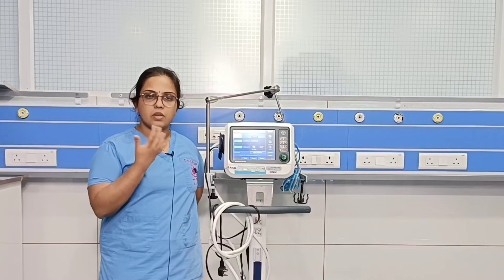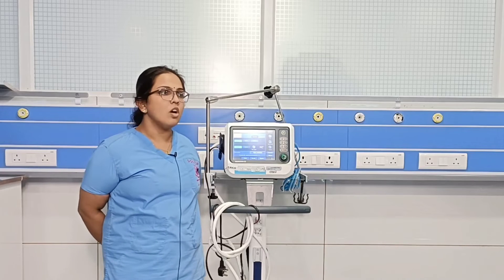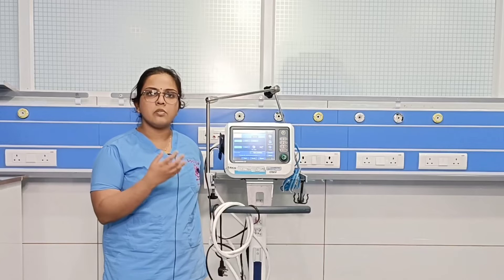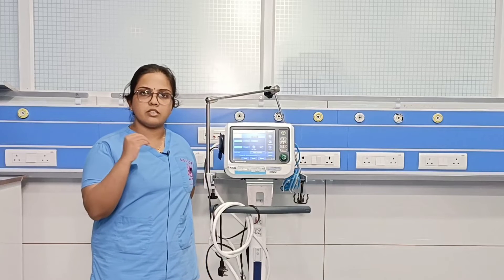If the patient is intubated for a lung pathology and we want to give complete lung rest, we can sedate and paralyze the patient and use CMV mode. The CMV mode can be either a volume control mode or a pressure control mode. In volume control, we set a target volume and the ventilator provides pressure to achieve it. In pressure control, we target a pressure and the resulting volume is achieved.